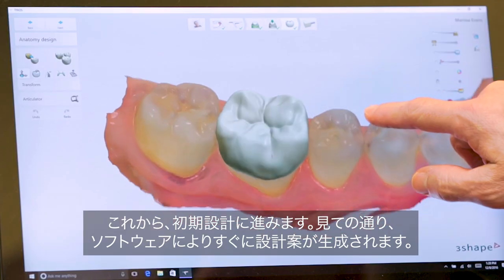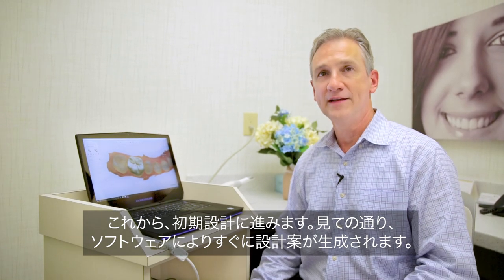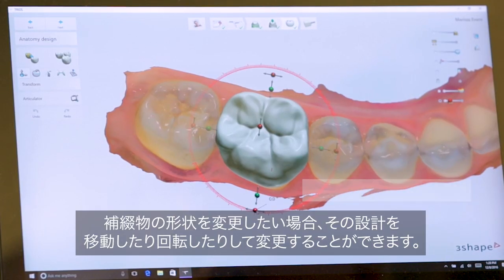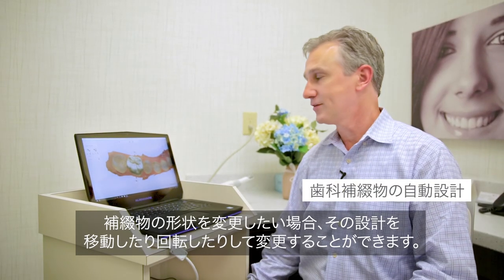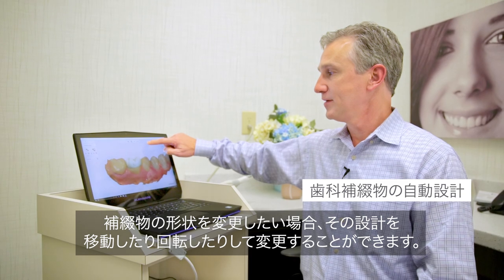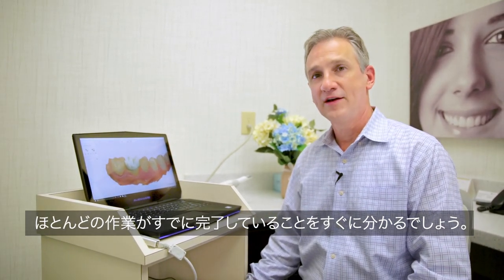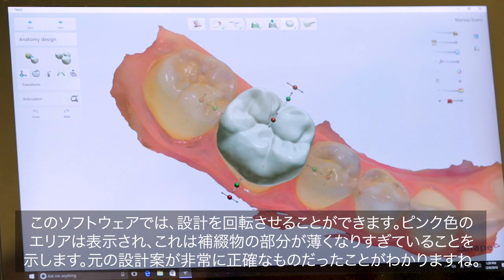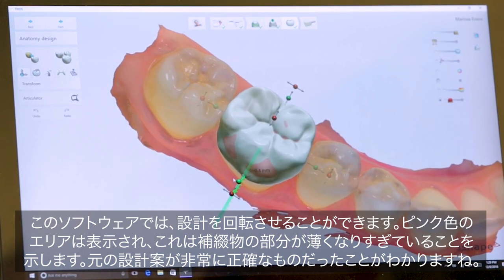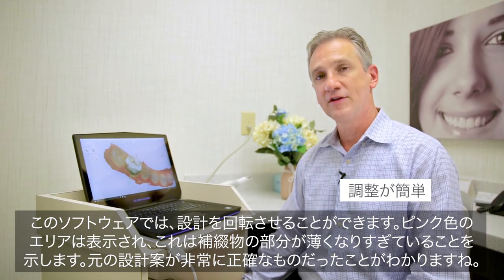As you can see, the software immediately gives you an idea on design. That can be changed if you'd like to alter, rotate, or change the shape of the restoration. Very quickly you can see that most of the work is already done. The software allows you to make rotational changes. You can see where the pink marks come in is where the restoration is going to be too thin.